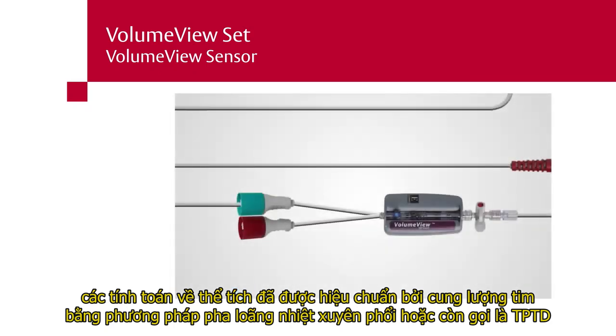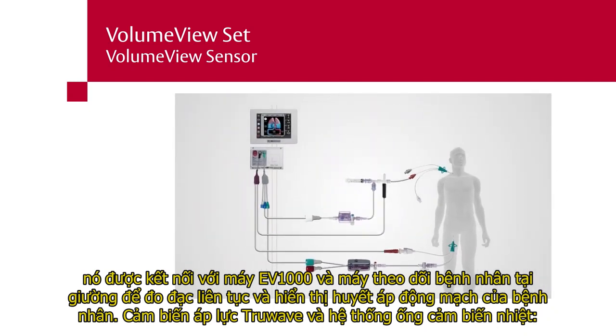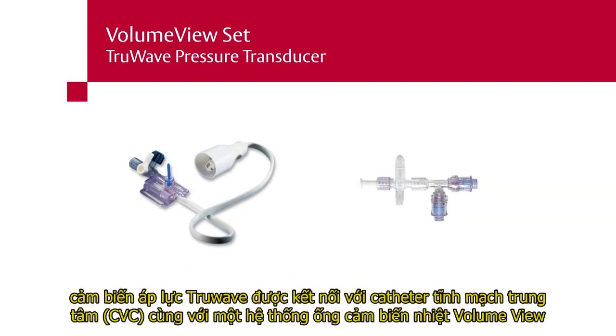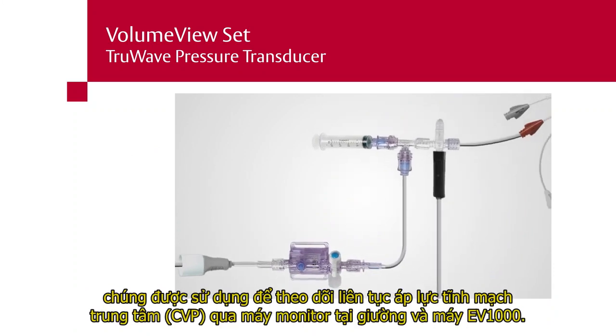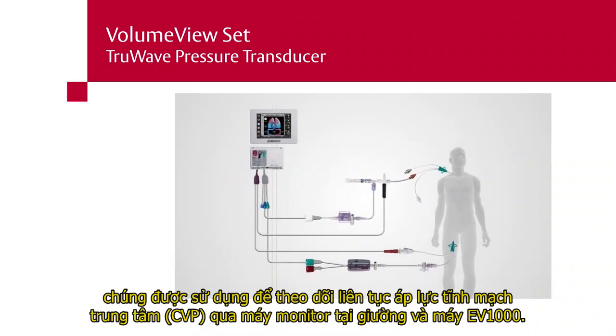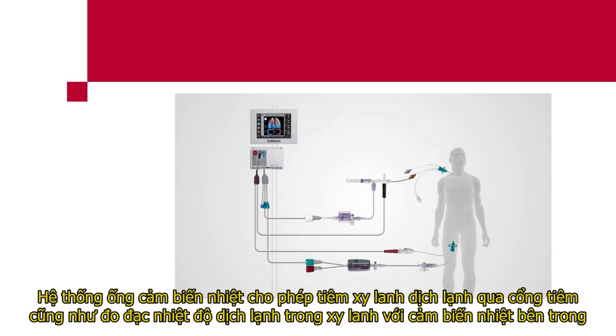It is connected to the EV1000 clinical platform and the bedside physiologic monitor for continuous measurement and display of the patient's arterial pressure. True wave pressure transducer and thermistor manifold. The true-wave pressure transducer is connected in line with a central venous catheter, or CVC, via the VolumeView thermistor manifold. These are used to continuously monitor central venous pressure, or CVP, on the bedside monitor and the EV1000 clinical platform. The thermistor manifold allows for the injection of a cold bolus through an injection port, as well as the measurement of the bolus temperature with an inline thermistor.